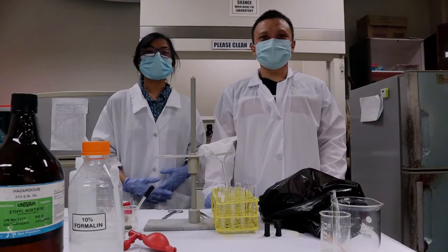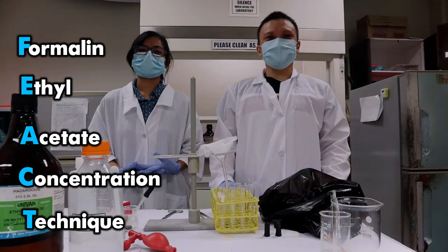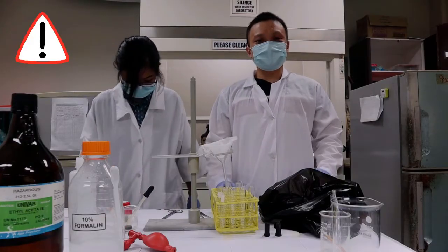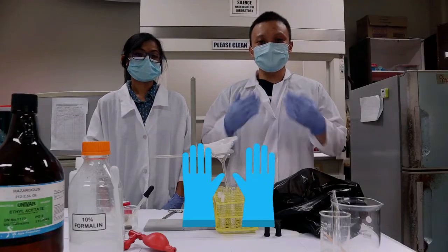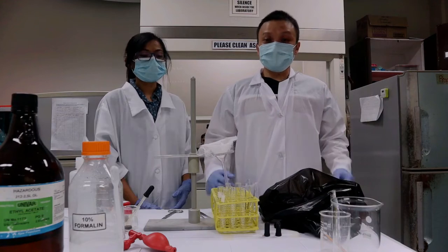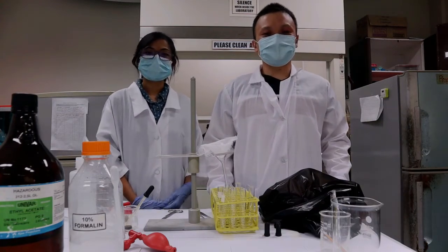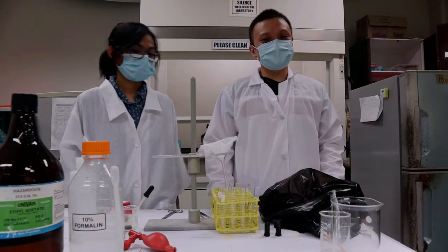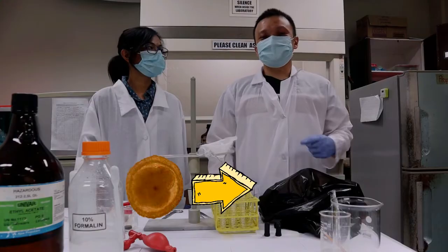And we are here to present Formalin Ethyl-Acetate concentration technique. First, we should be wearing proper laboratory attire, which is lab gown, gloves, and face mask. And for girls, you have to tie your hair. Today, we will be conducting FEACT, or Formalin Ethyl-Acetate concentration technique. It is a type of sedimentation technique used to concentrate helminth eggs in fecal samples.